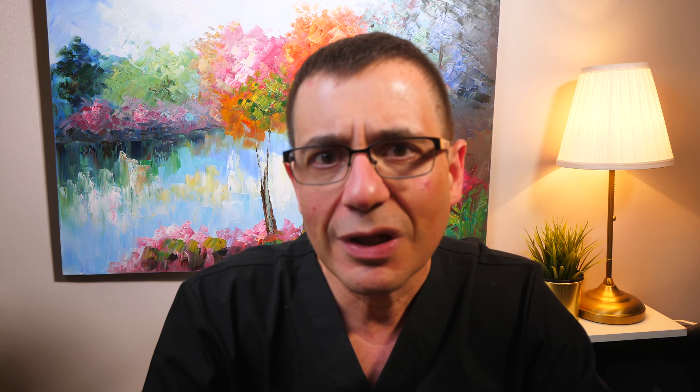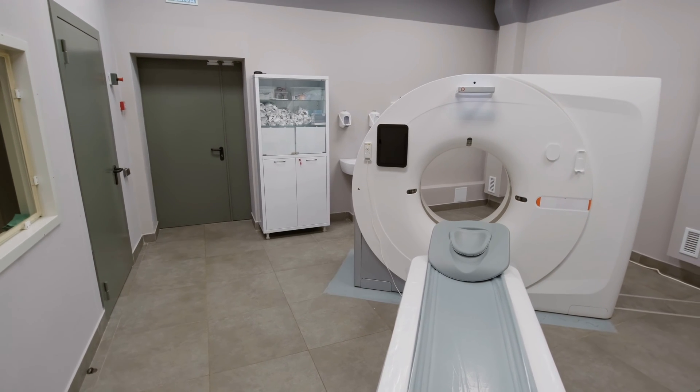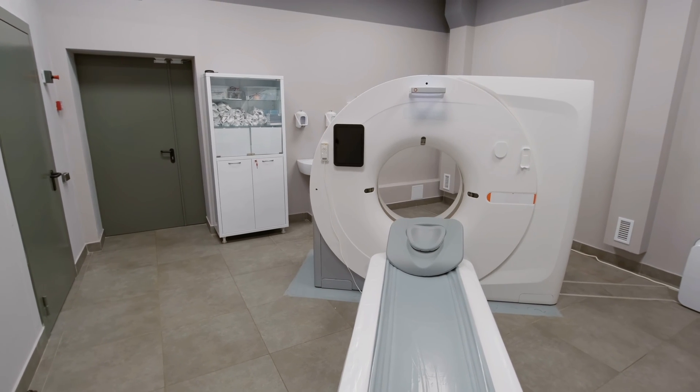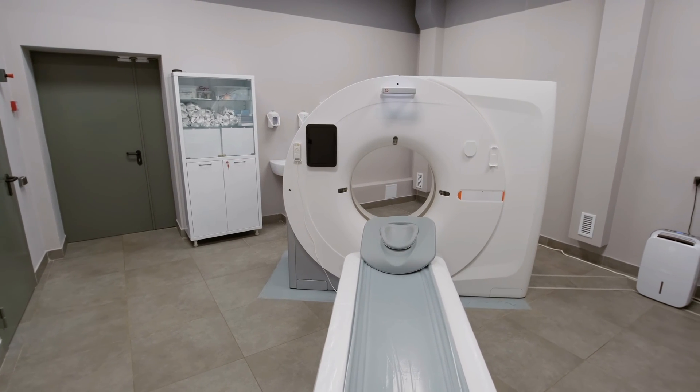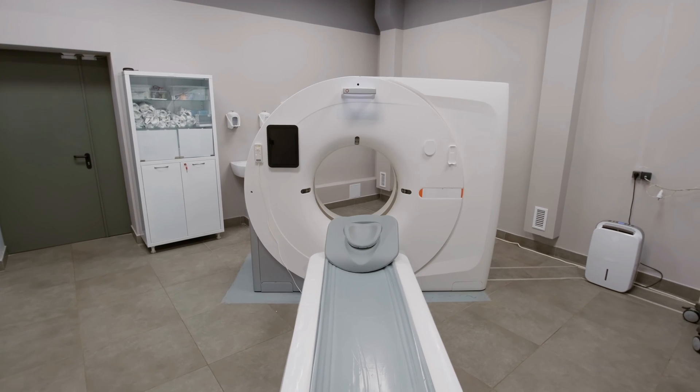These days, we can get similar information to the angiogram by using dye and an x-ray machine. However, this is performed in a non-invasive way, using a CT, or computer tomography machine. You might have had a CT scan for other things — tummy pain, back pain, and so forth — but this scan is performed in a diagnostic or radiology centre.